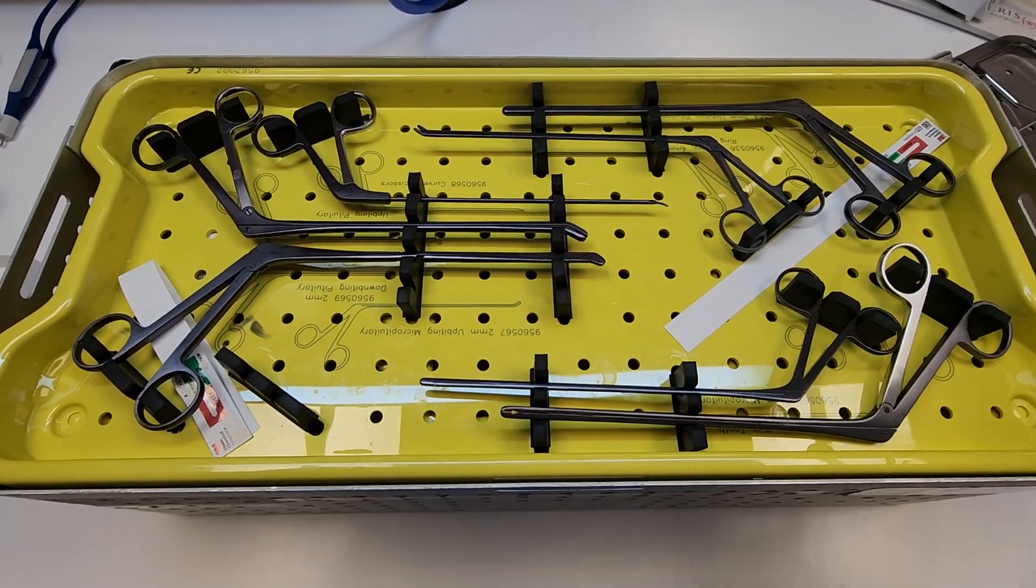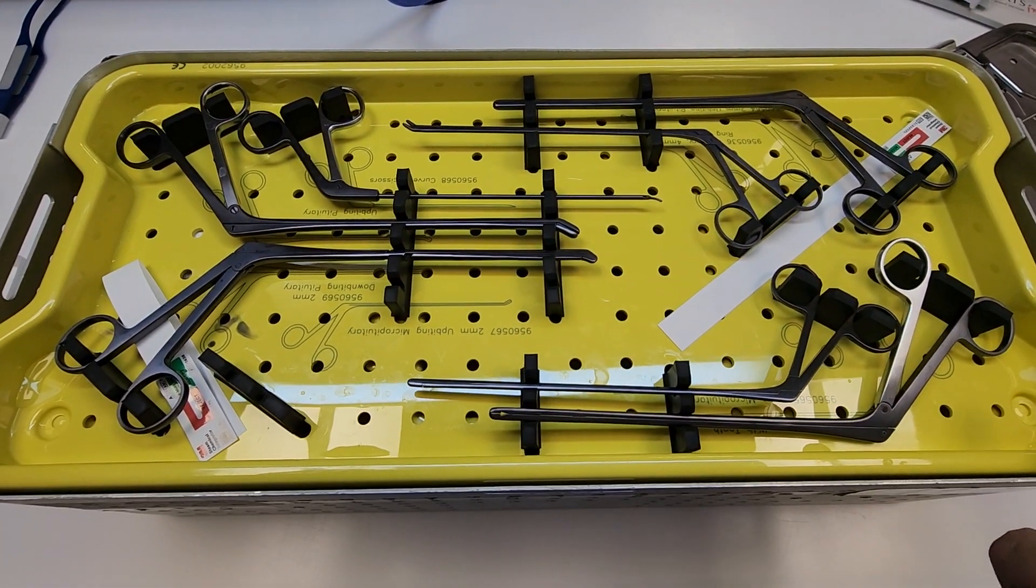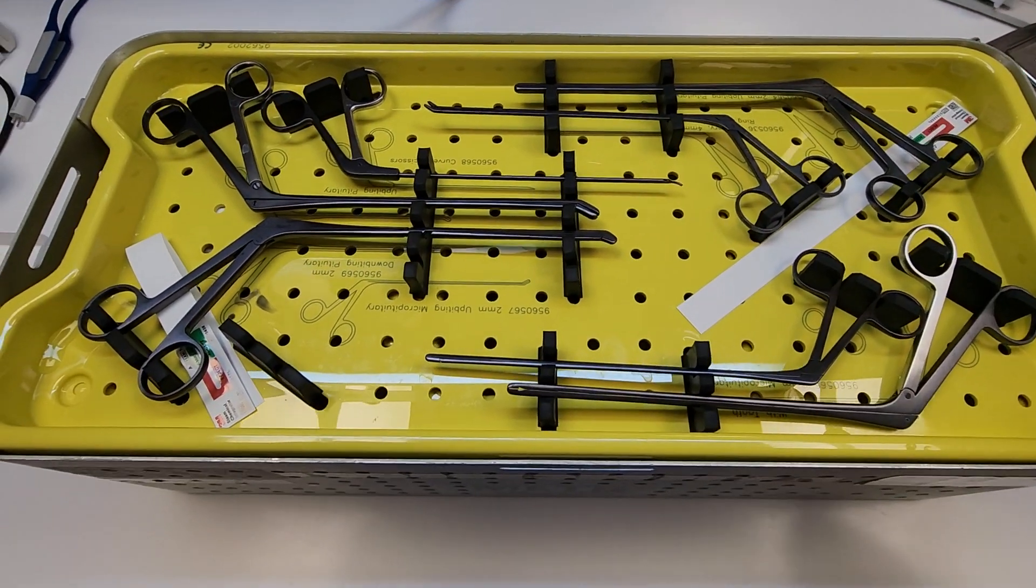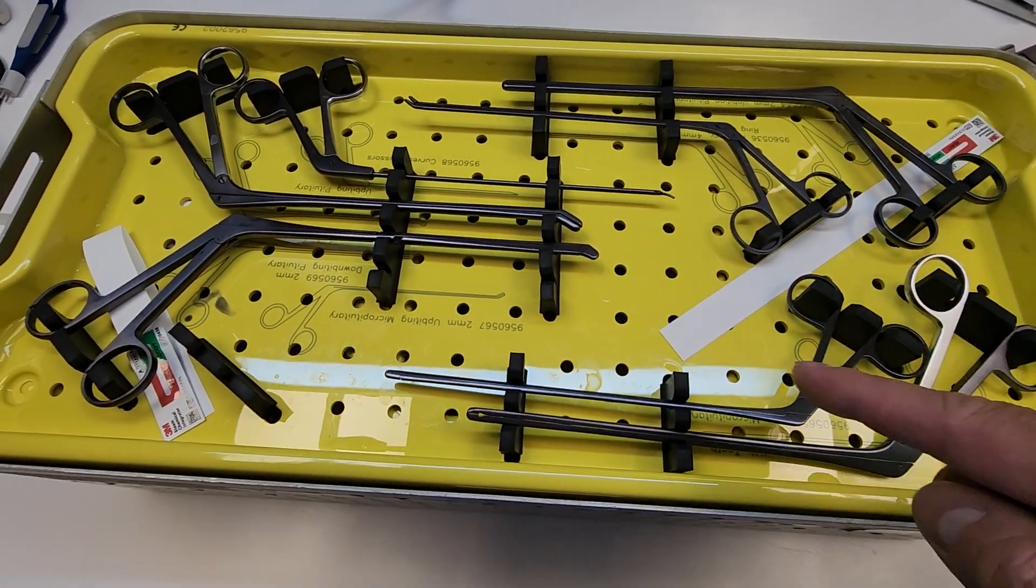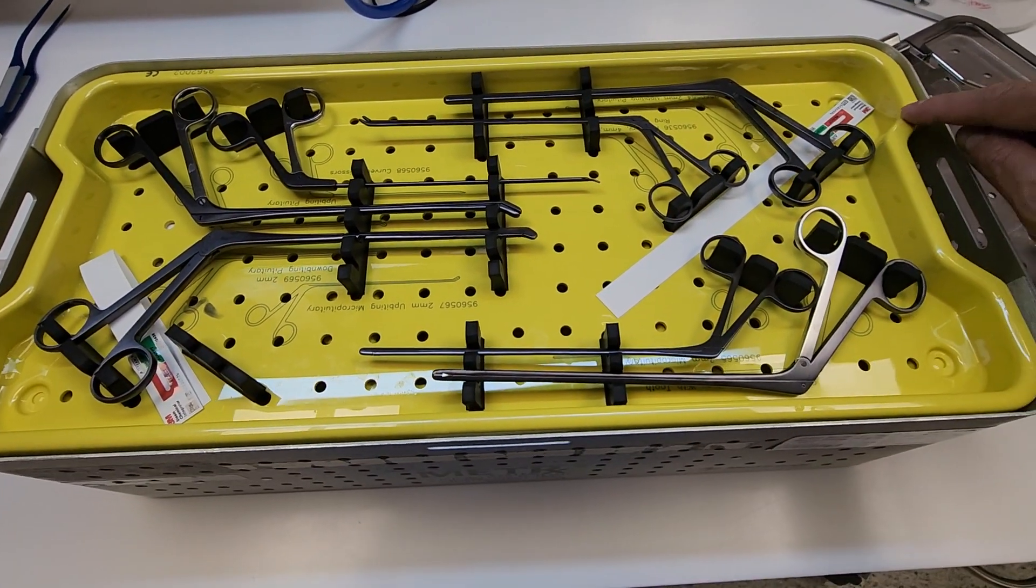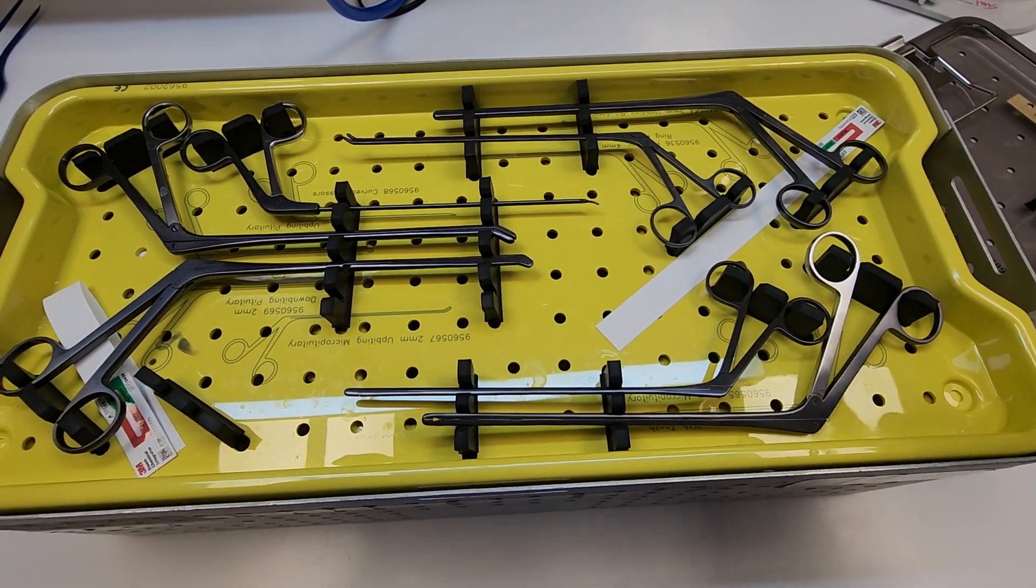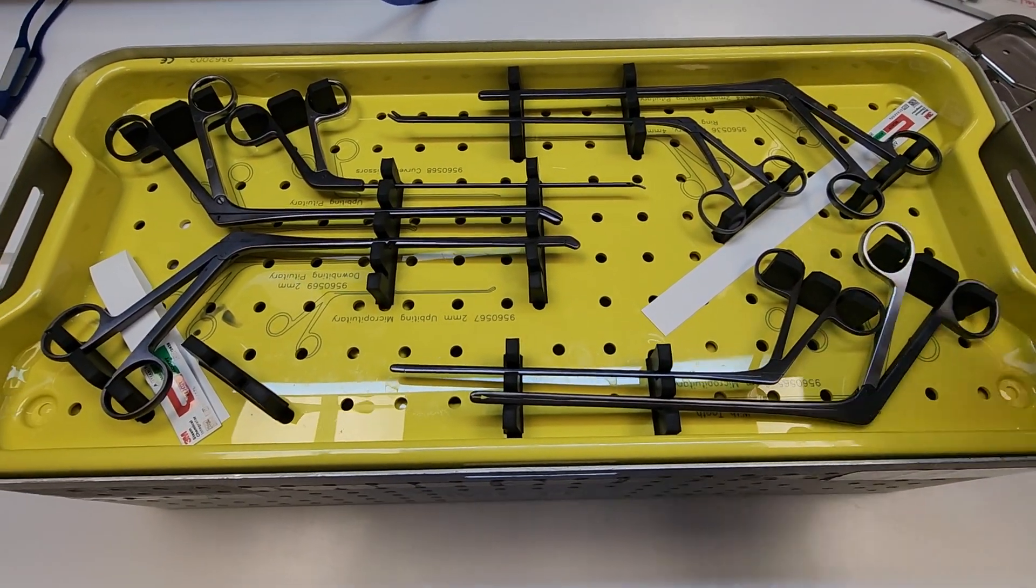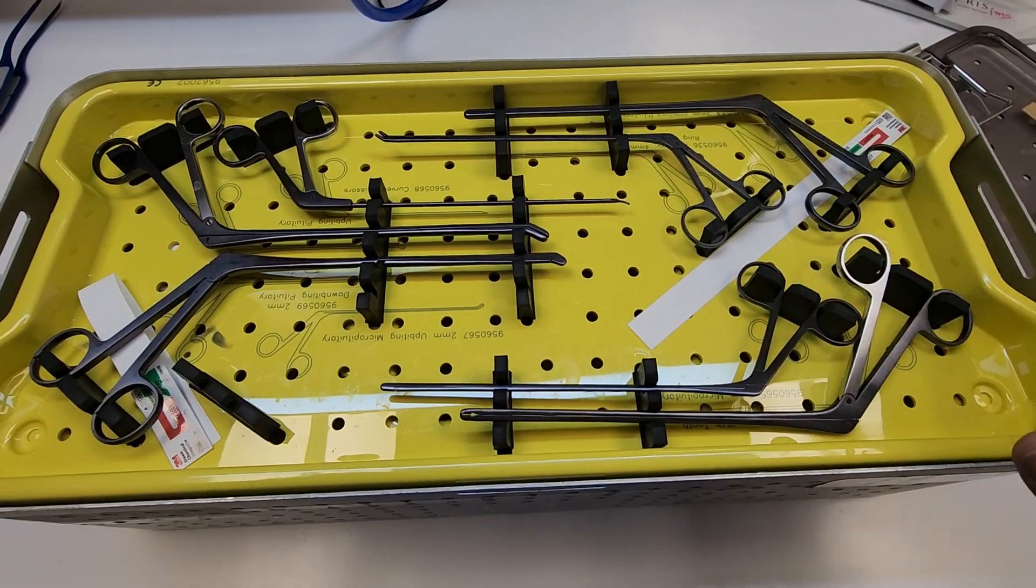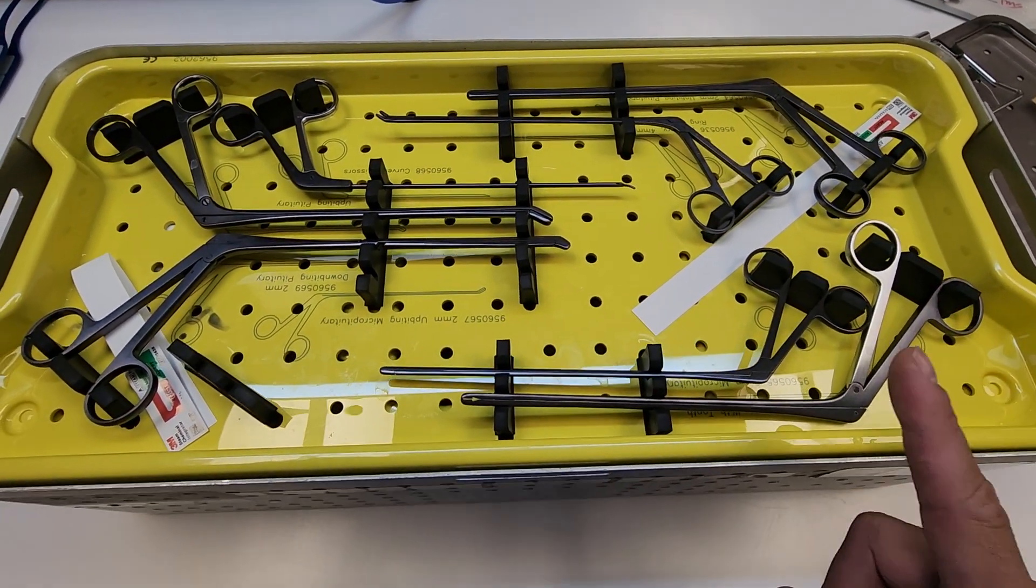And that can be in the center actually, but our standards state that at least one should be in there. So I can technically just put one in one corner on each layer, but if you're following the IFUs of the indicator itself and the indicator is not specifically telling you a spot, then you should be placing... if the indicator is not telling you a spot, then one is sufficient enough.